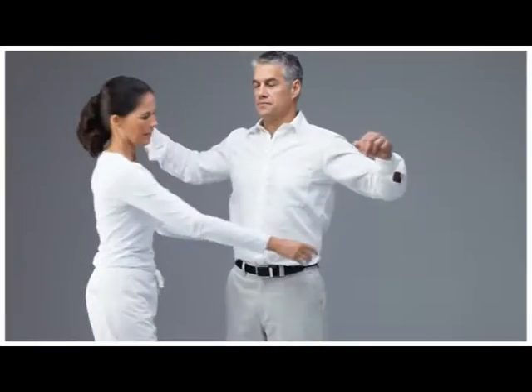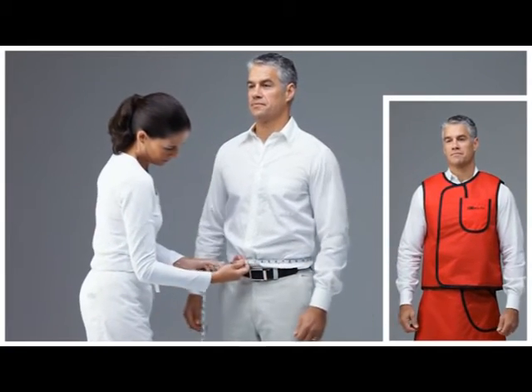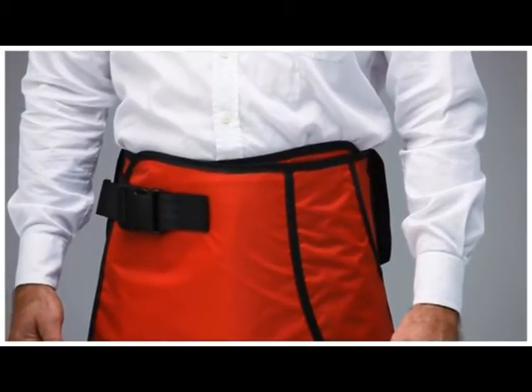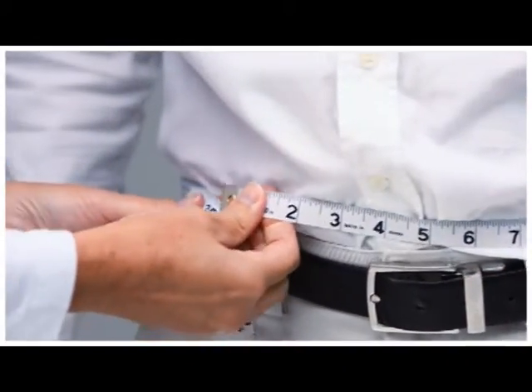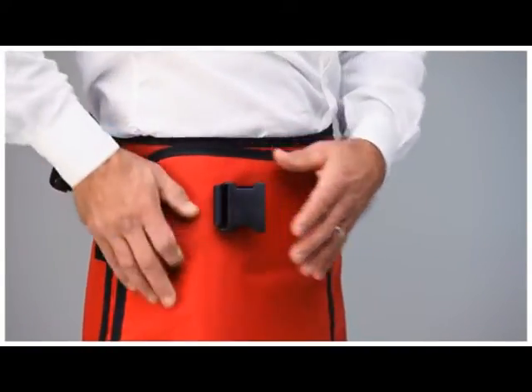For the waist, the location of the measurement is important, particularly for two-piece vests and skirt sets. The measurement should be made where the skirt will be worn, most often above the hip bone in line with the navel. Be sure to measure around the fullest part of the abdomen to allow full hip-to-hip overlap.